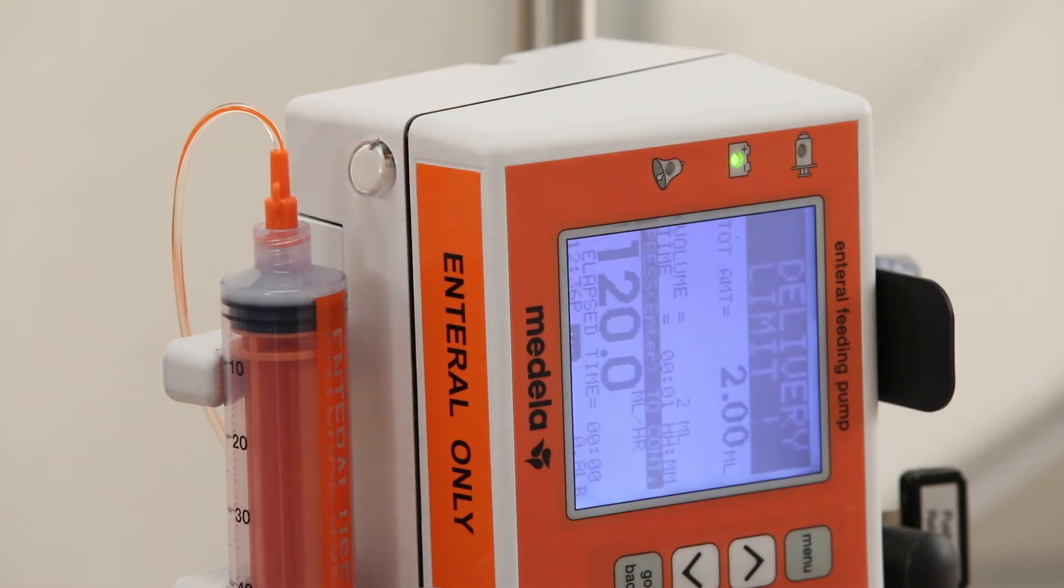Once feeding is complete, there will be a red flashing indicator light as well as an audible alarm.